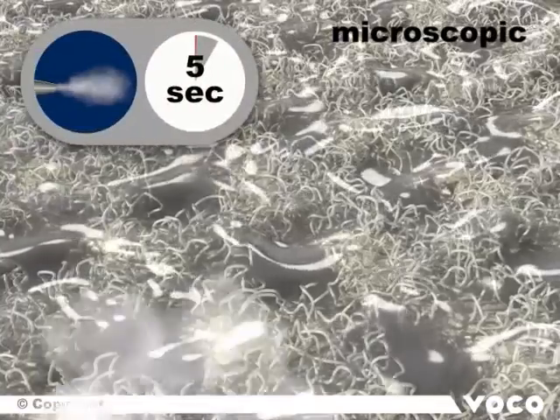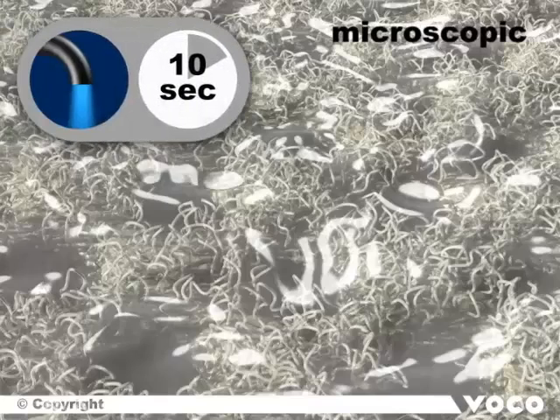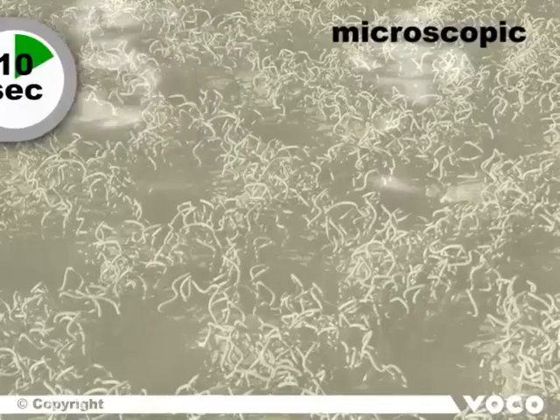The newly formed hybrid layer is now fixed by the gentle air drying of the solvent and light curing. Dentine tubules are reliably sealed by the adhesive which has penetrated them creating tags.